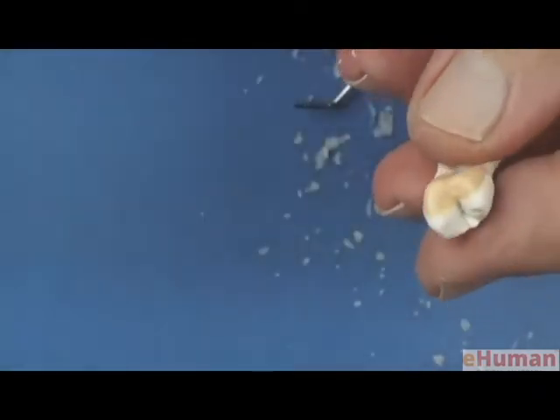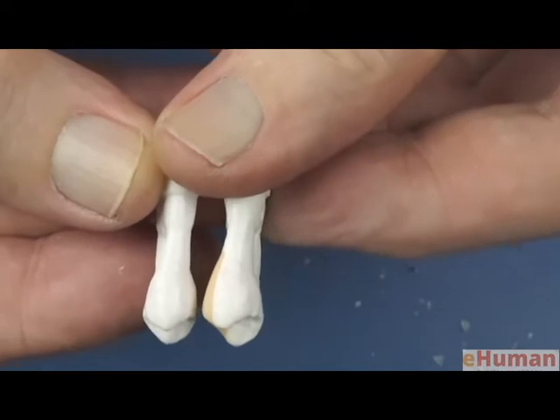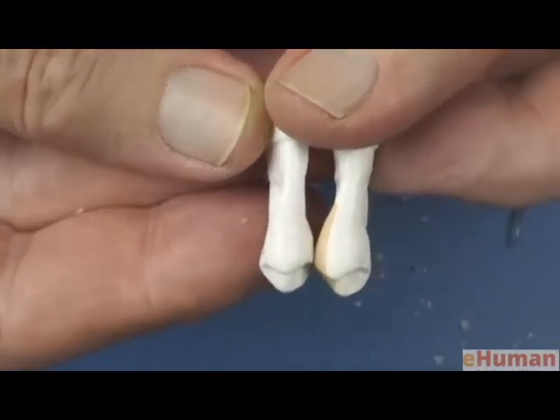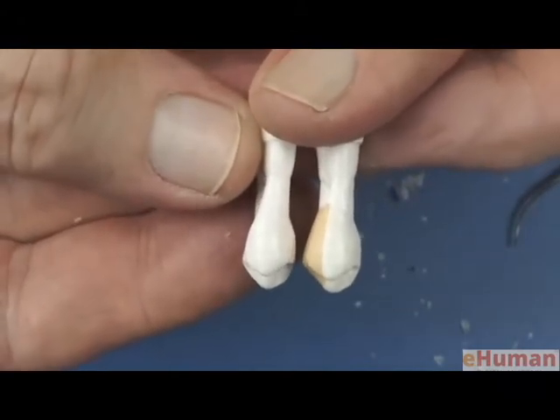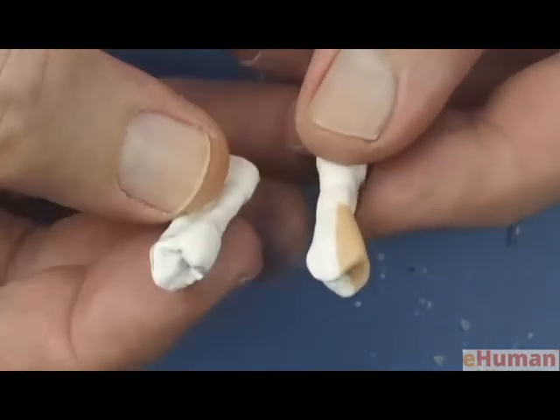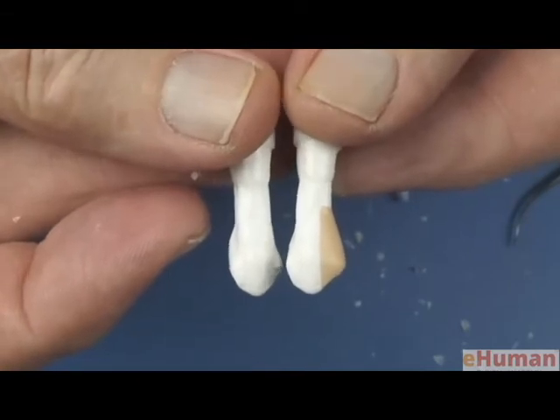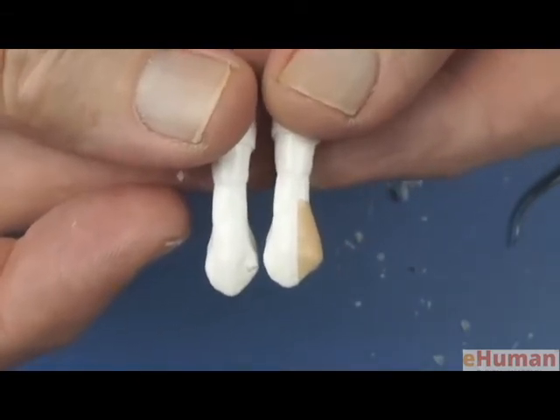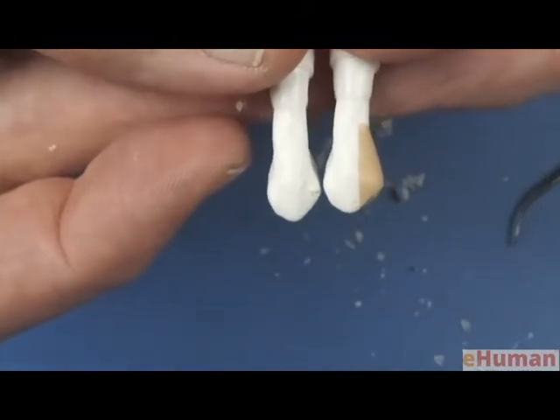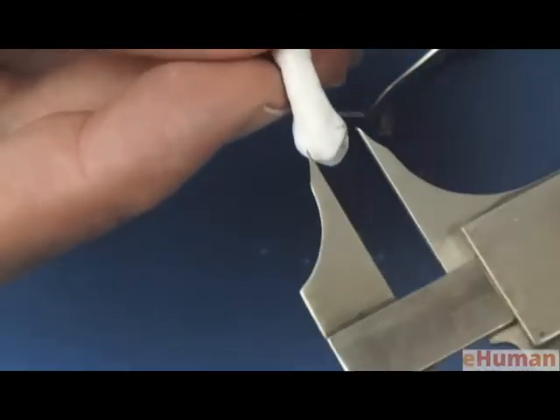And then start doing some comparisons again. I've done some initial carving. Let's look at it from the lingual surface, see if we like what we have here. And other than right down there by the cervical line, because I haven't carved that in there, that looks pretty nice. And then looking at the facial surface, and again, other than it's a little bit wide mesiodistally, you can see the dimension of the tooth is bigger, and I don't have the concavity. So I'm going to go back and remeasure that, because in that last addition I added too much wax.